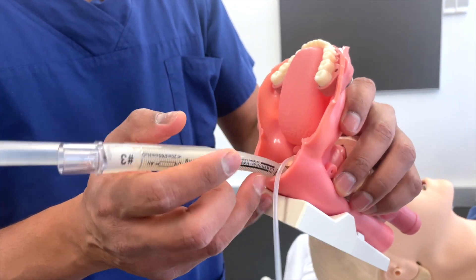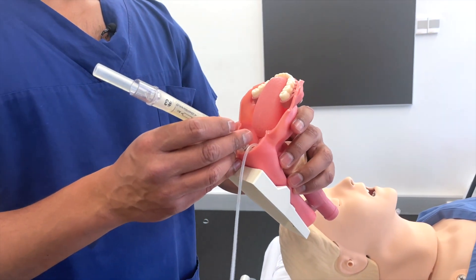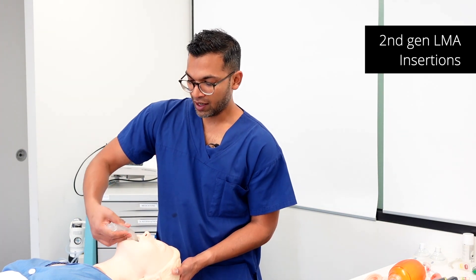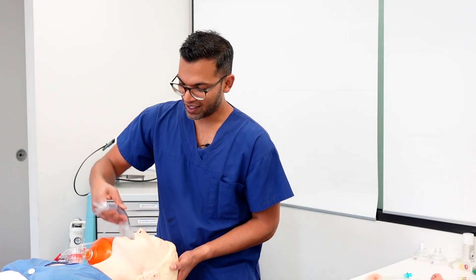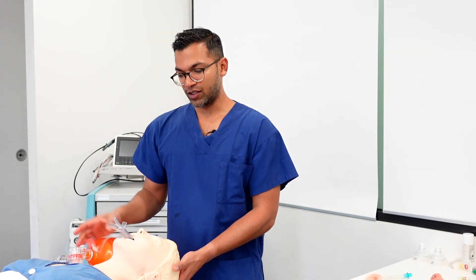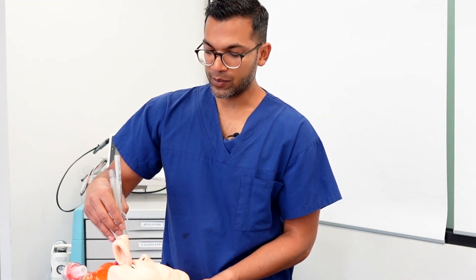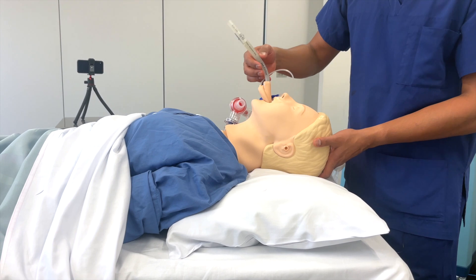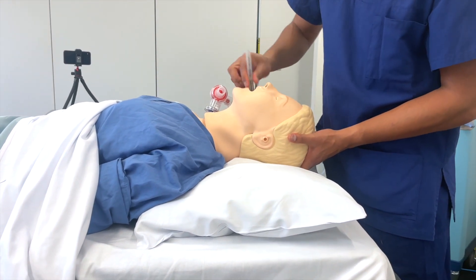The Supreme LMA has a similar design — a gastric port as well as a ventilatory port, blocking the esophageal opening. The ProSeal, one of the first second generation LMAs, also has a gastric port that sits just above the esophageal opening. It has quite a large drain tube, making it easier to pass a nasogastric tube to drain the stomach if needed. The iGel doesn't require cuff insufflation — the structure simply molds to the right position. The Supreme uses a similar technique, inflating the cuff to ensure adequate seal. The ProSeal often comes with an introducer to provide this flexible LMA with more structure during insertion.